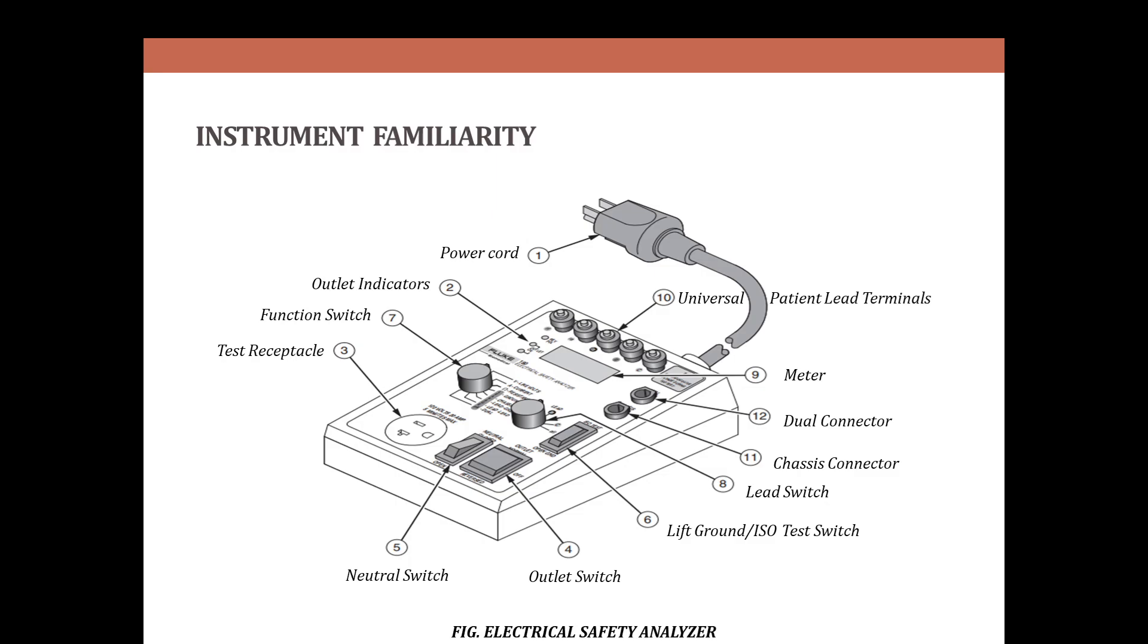Next, the outlet switch. If the center position, there will be no power to the devices under test receptacle. It is recommended that the switch be placed in the center position before changing the polarity and the lift to ground or ISO test switch.